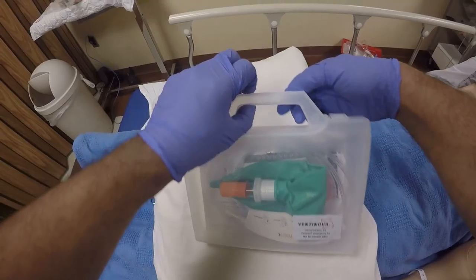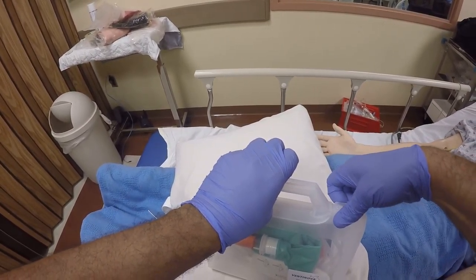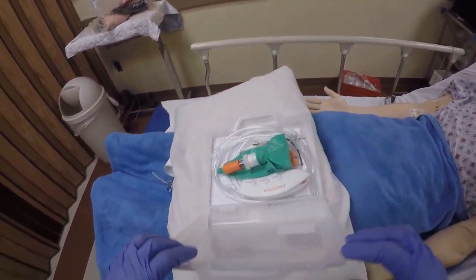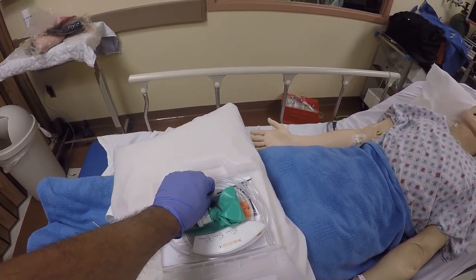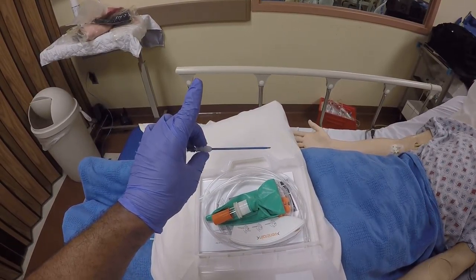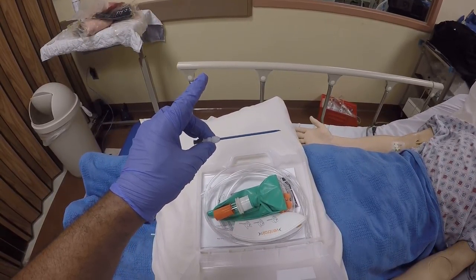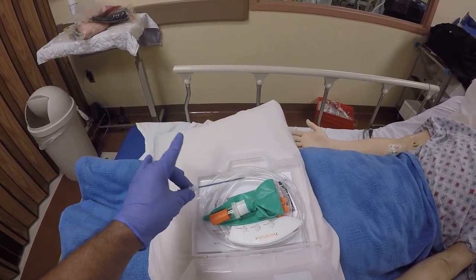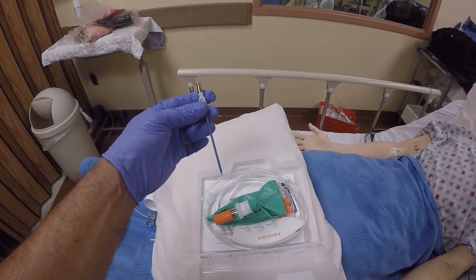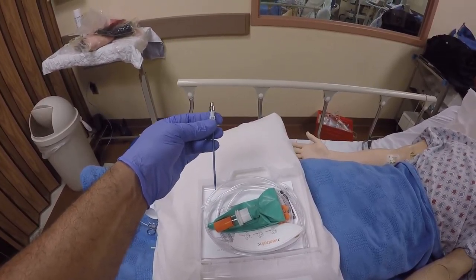Now I don't understand all the physics. I do know that this device comes with a bag for demonstration. It's not FDA approved. The catheter needle — the 13-gauge needle catheter — is recommended for this device. This is the device being used, supplied to me with the demonstration kit by Cook.